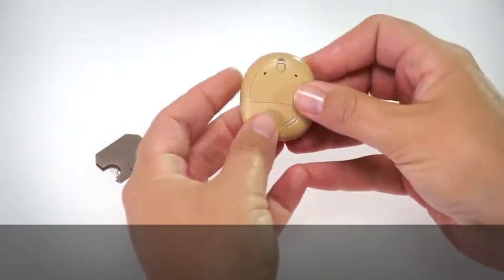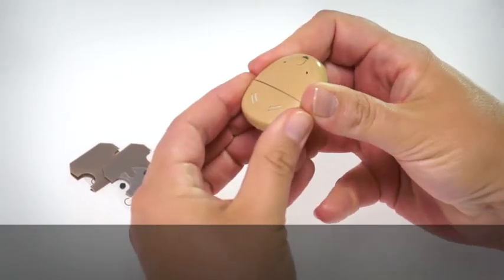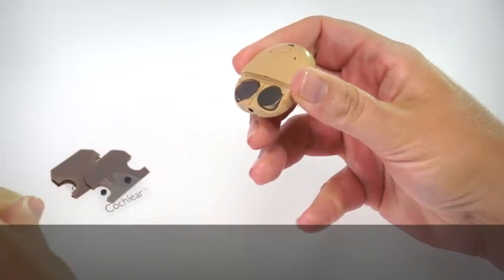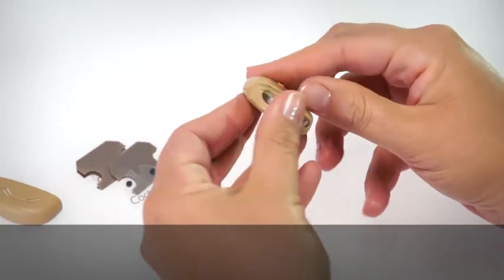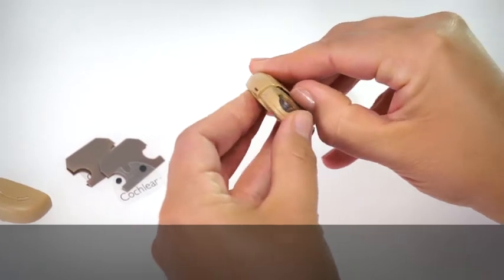To remove microphone protectors, first remove the battery cover. Then use your thumbnail to remove the sound processor's front cover.